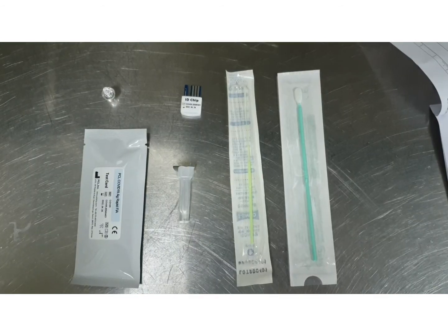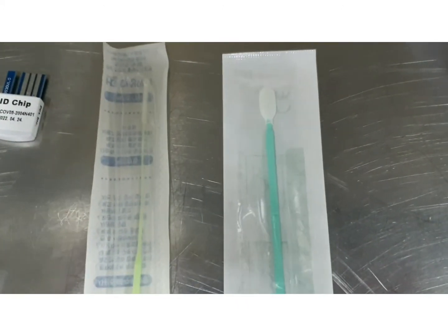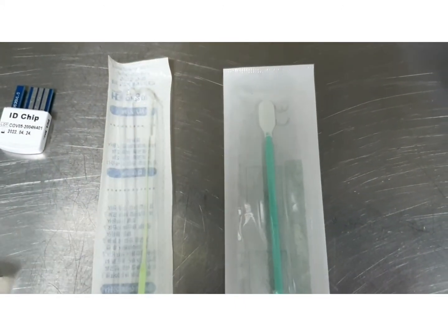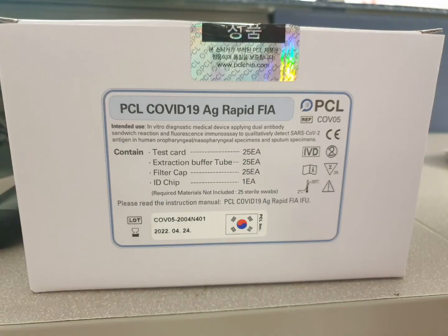These are the consumables. The testing kit must be stored at room temperature up to 30 degrees Celsius in a dry place. When opening, the staff should indicate the opening date and the staff initial on the used testing kit. The expiration is still the manufacturer expiry date that is indicated on the kit.